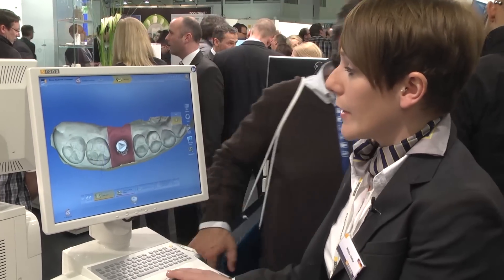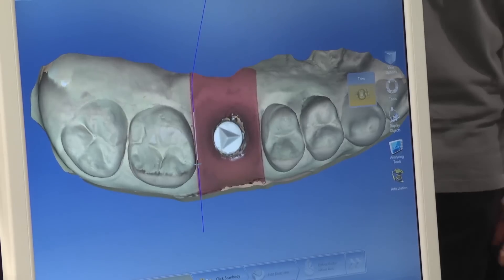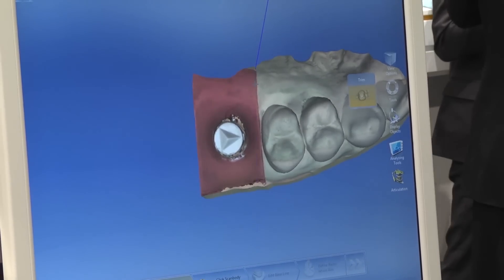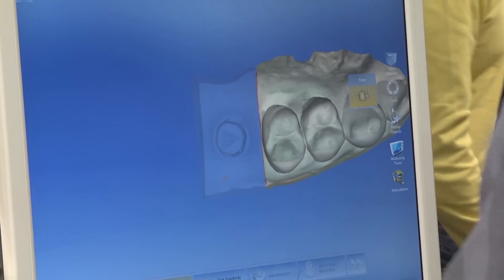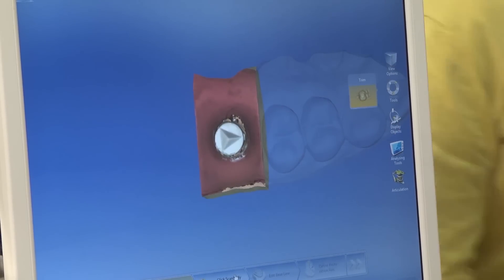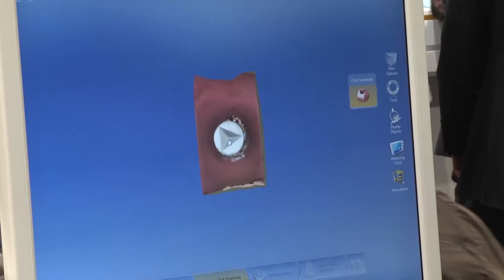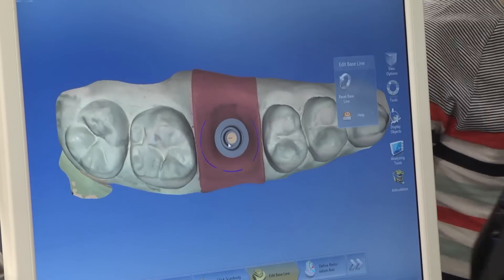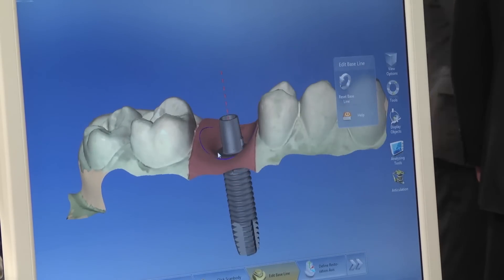We now trim this area to receive a so-called gingiva segment — a gingiva mask. It's a normal trim. The next step is to click on the scan body. You see the scan body here — you just click on the occlusal side, and the software recognizes the surface and can directly see the position of the implant, which is necessary for the restoration and of course for the abutment.